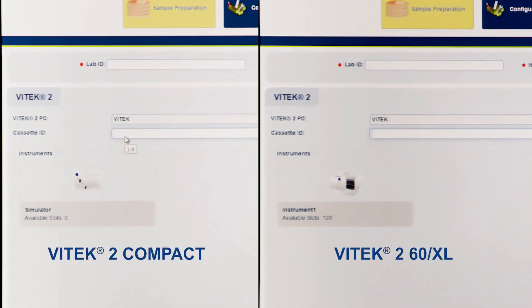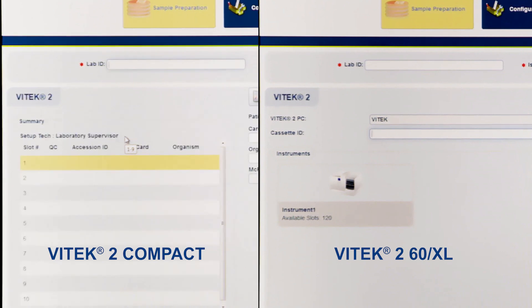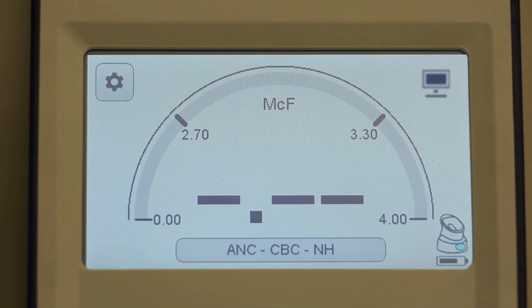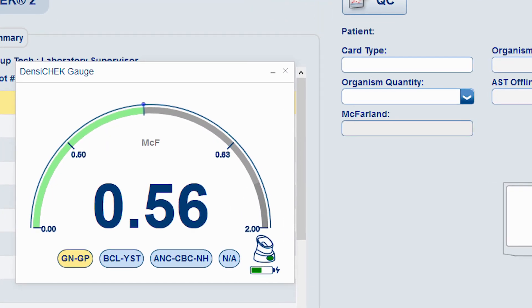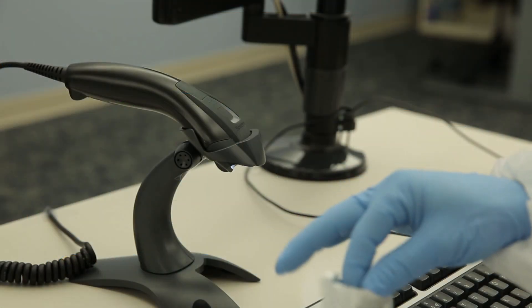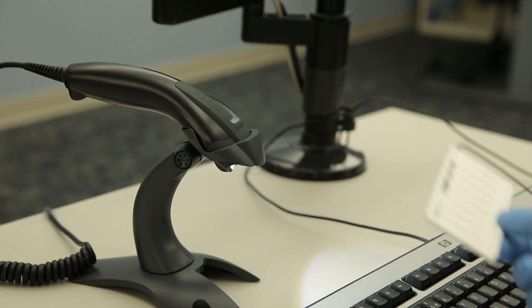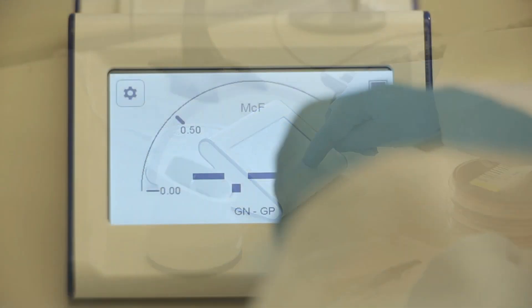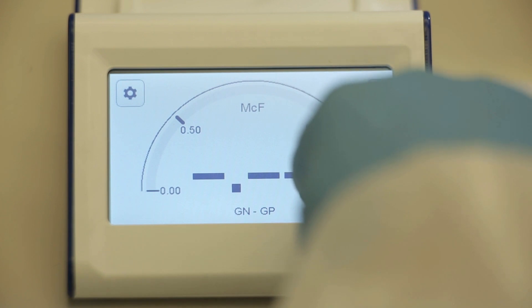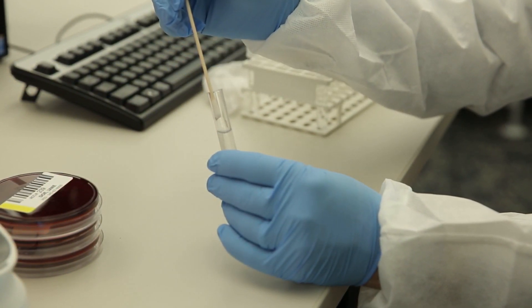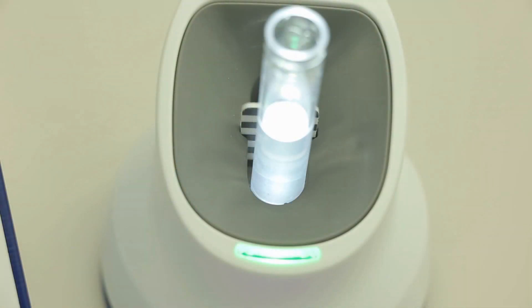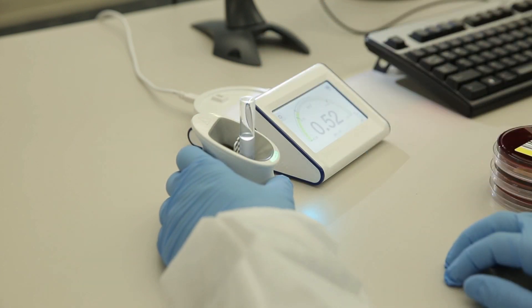To create a FlexPrep cassette, enter a cassette ID using a number 1 through 9 for the Vitek 2 Compact, or up to a 4-digit label for the Vitek 2 60 or XL, and press Enter. Gently press the Card Type button on the McFarland screen of the Vitek Densichek Base until the desired Card Type appears. Or click the Card Type displayed on the Densichek window in Vitek FlexPrep, or scan the Card Type being used into the Vitek FlexPrep application. Scanning the card will lock the Card Type and range on the Vitek Densichek Display Base. Combine saline and microorganism in the test tube and mix the suspension until a homogenous solution is obtained. When ready, insert the sample tube into the front slot of the Densichek Pod. When dots appear on the display base screen, rotate the tube slowly until the McFarland value is displayed on the display base.